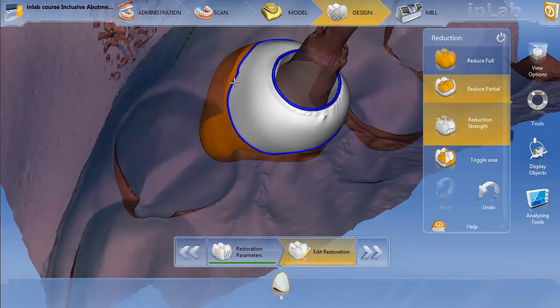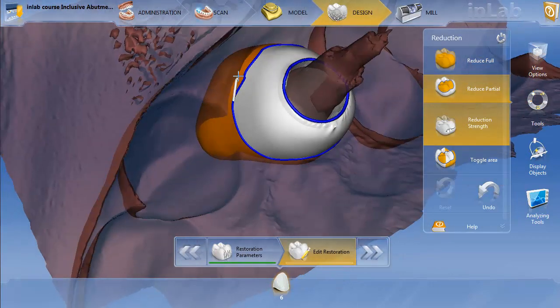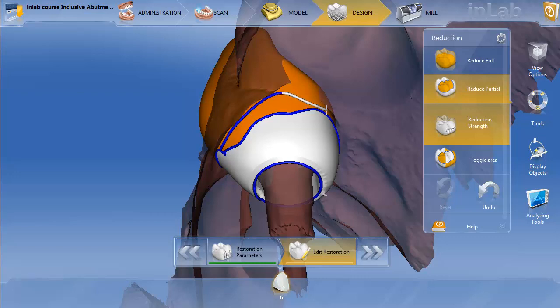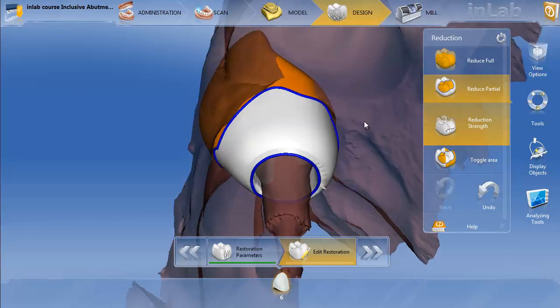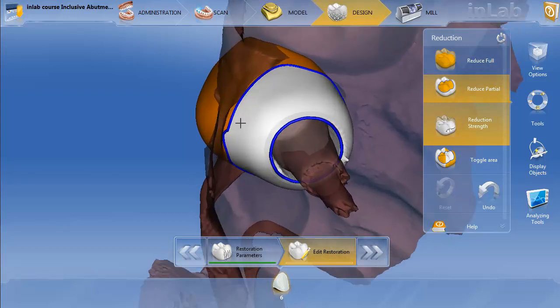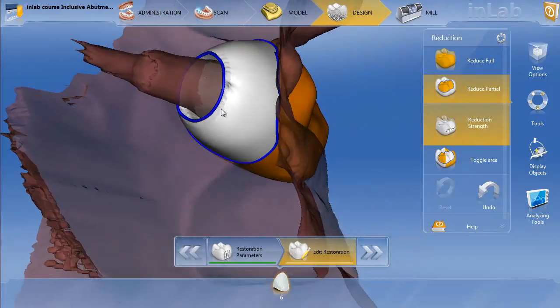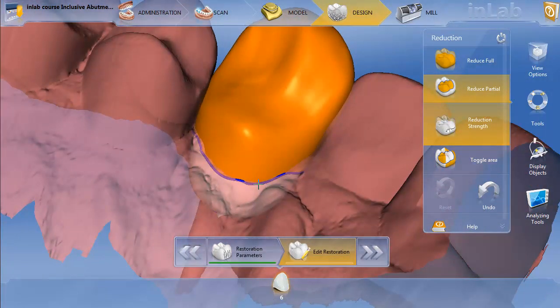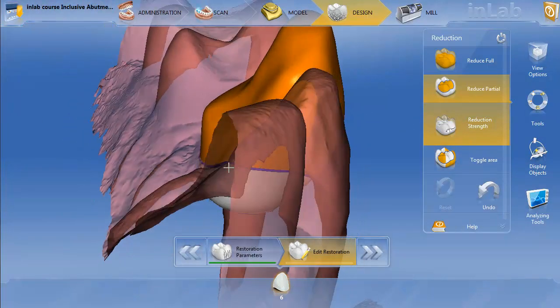So you can use different shades. We're going to get this pretty close to right at the gingiva. Just go around the restoration. Pretty close — we can look at it from the top as well. The nice thing about having this gingiva transparent is you can draw directly through it.